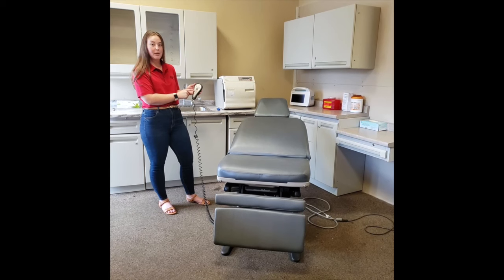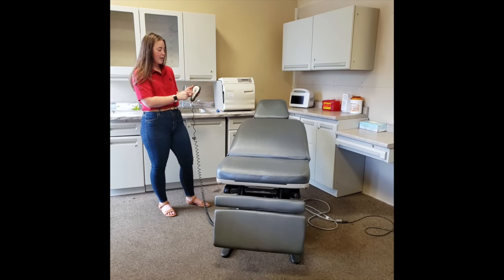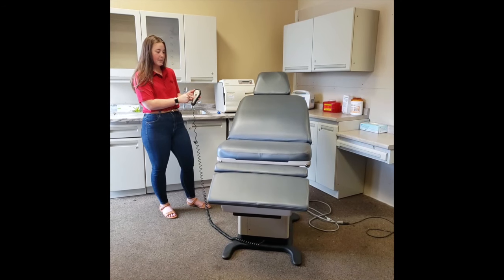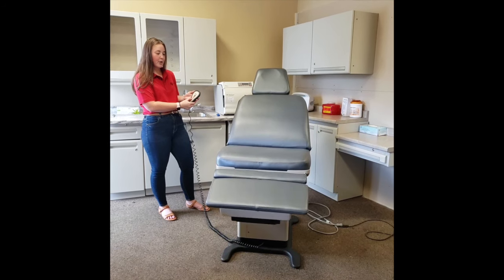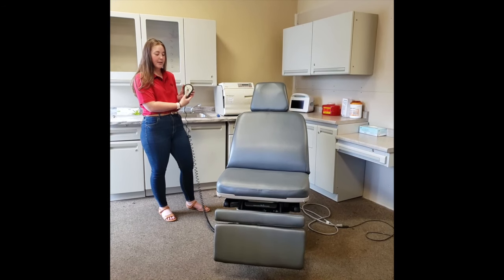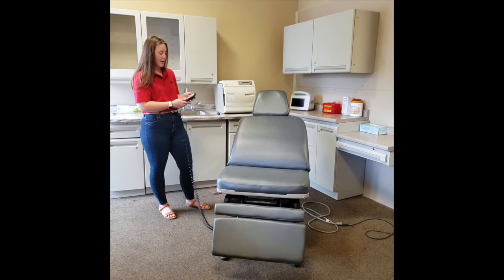Below, you have the numbers 1, 2, 3, and 4, which are programmable by the P down below. Number one will bring our chair up and extend it out, and number two we have programmed to bring the chair forward. There's also a home button that will bring your chair down to the ground as well.